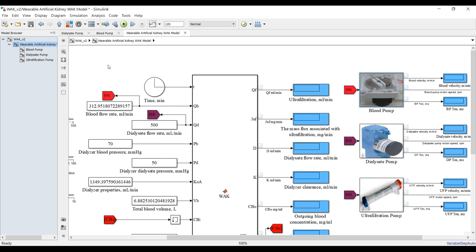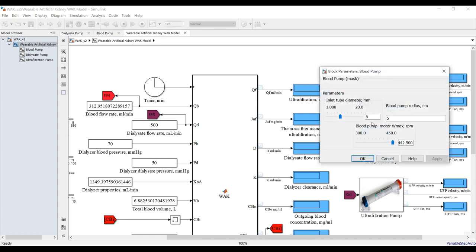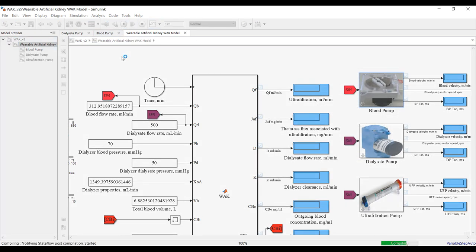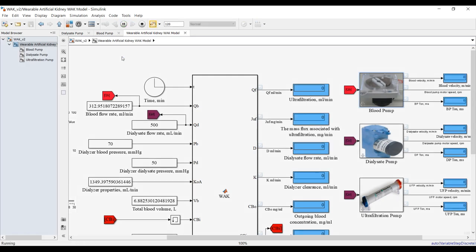Let's go outside and save. Suppose we need to purify the patient's blood within two hours — let's go for two hours. Hit run and see. You can change these parameters and observe the effect. Let's make a first run, then change parameters in a second run to see the difference.